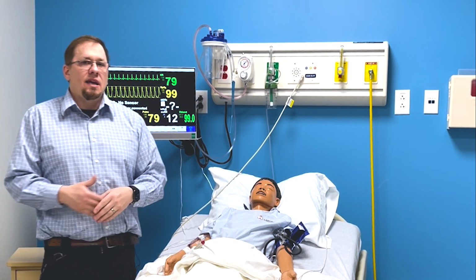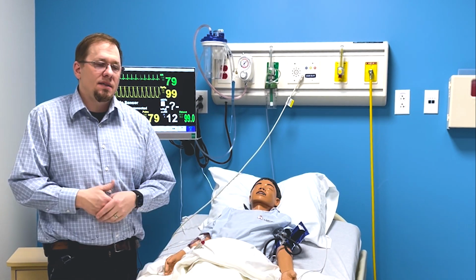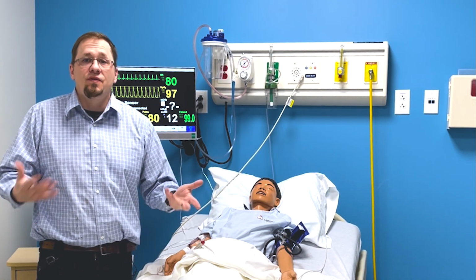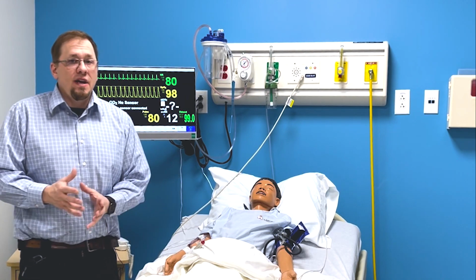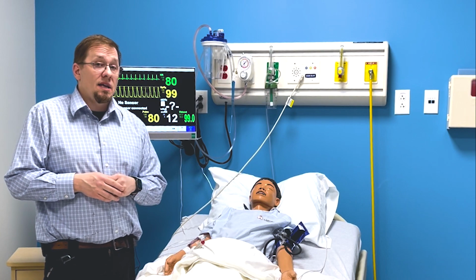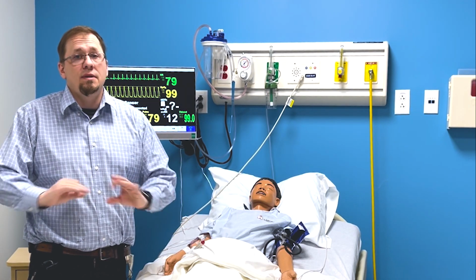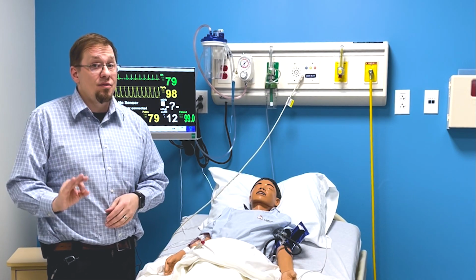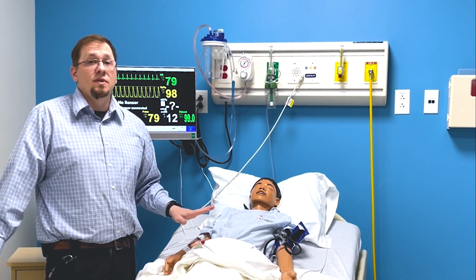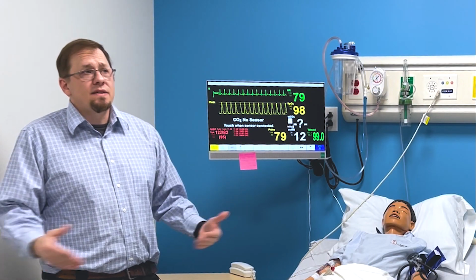Then any other things like, they don't need to act for anything. They don't need to simulate. They don't need to pretend things. I've had students, when the patient asks for food, I'm hungry, they will come and fake a bowl of soup and fake give it to them. And if I'm voicing the manikin, I'm going to say there's nothing there. Because again, do or do not, there is no simulate. We want them to do everything. If it's not in the room, it's not in the room. I always tell them on anything, they get what they get, and that's what they've got. If they don't have it in the room, it's not there. So those are the basics of the orientation.